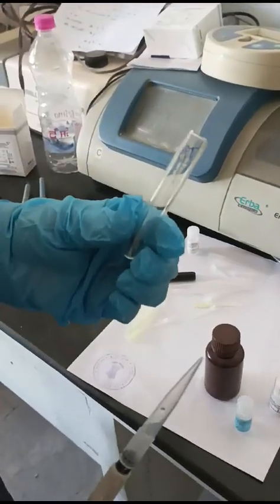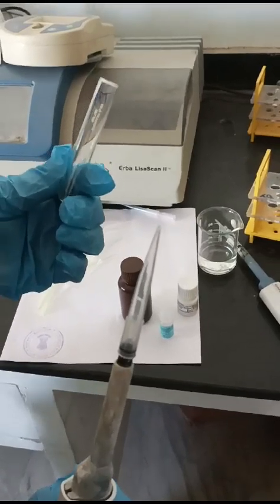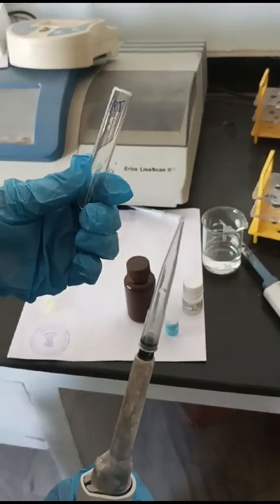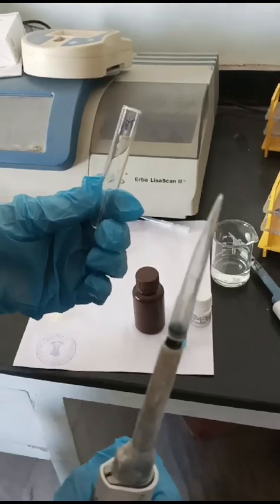Now we are going to do the HDL cholesterol estimation. Almost all the steps that we do in the total cholesterol are the same thing.